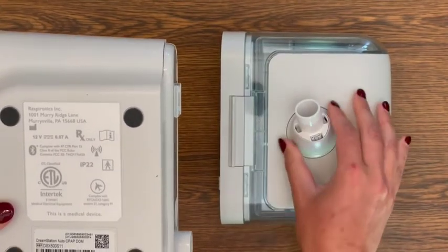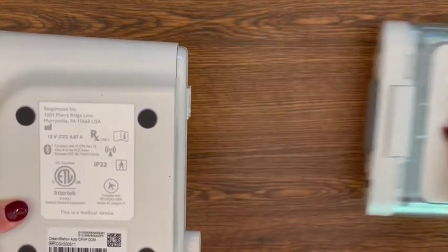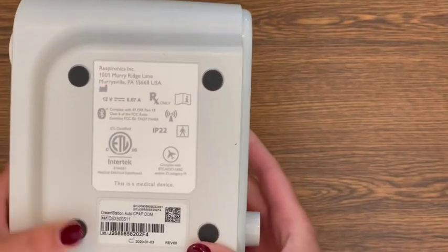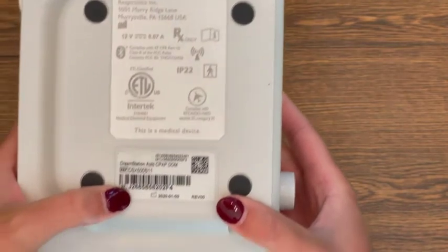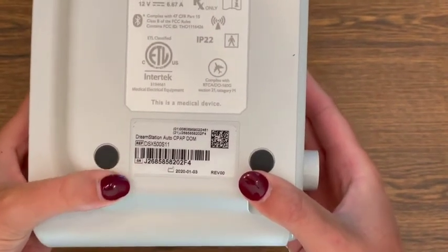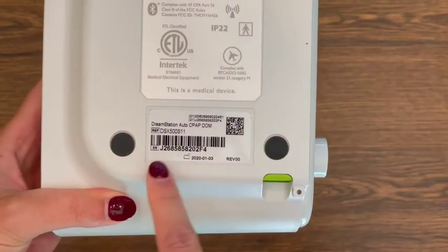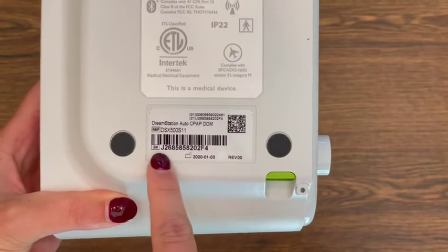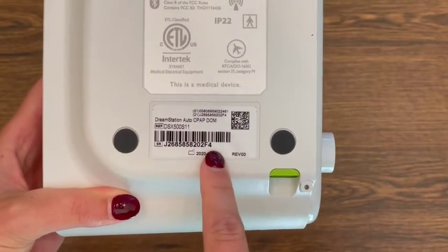After all accessories have been removed, turn over your device to locate your device serial number on the label. This will be referenced with an SN followed by letters and numbers.